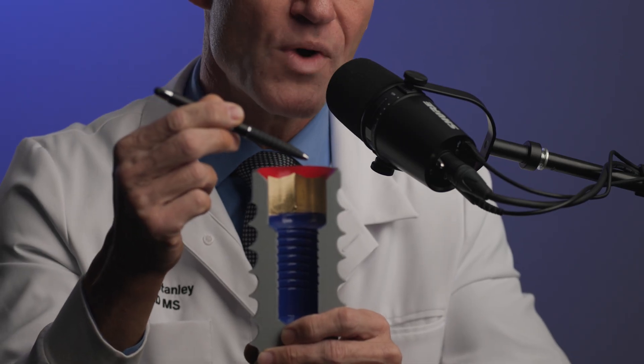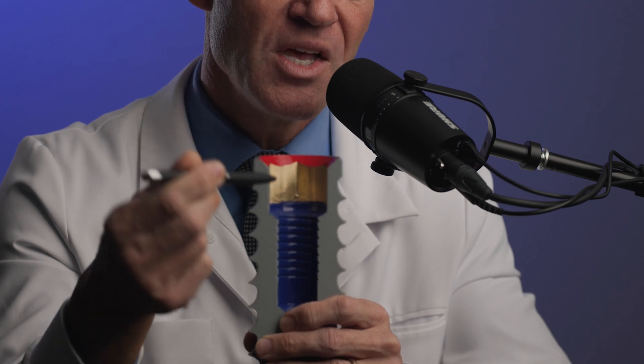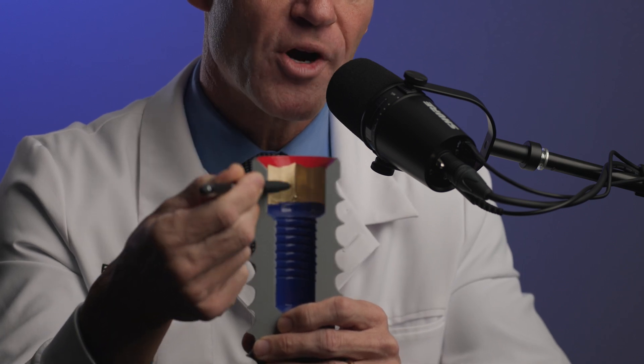I have a model here of your traditional shallow conical seal. With a shallow conical seal, you have a conical seal represented here by this red region on the top. The gold part is the hex — the indexing device that allows us to have timing on our implants. So the red part is the shallow conical seal.